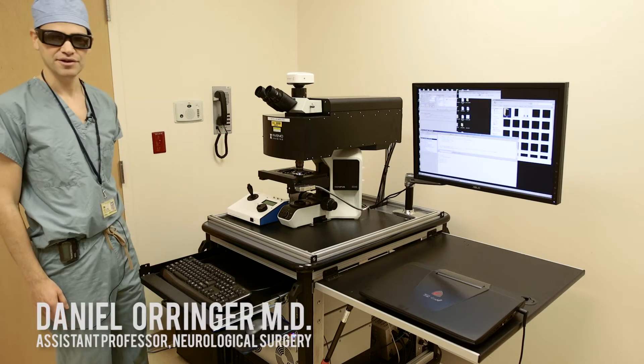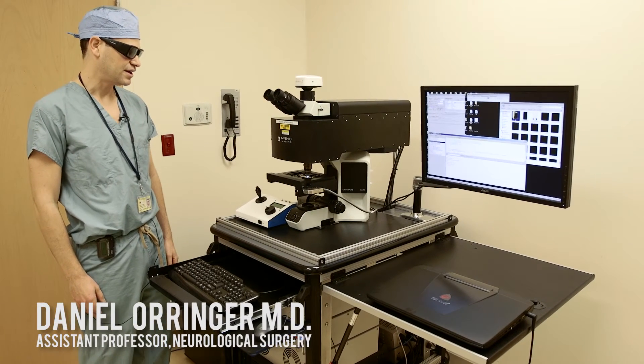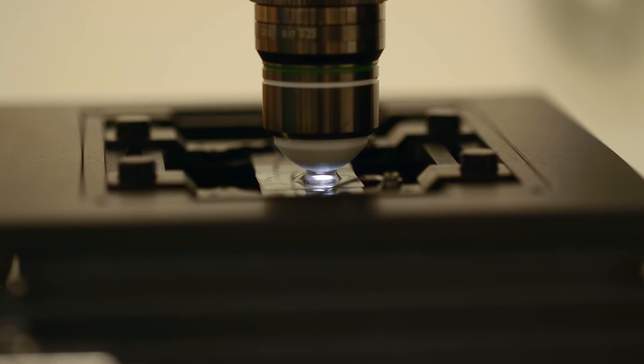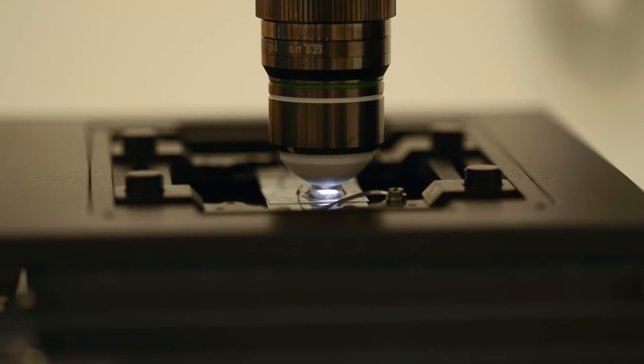This is the first clinical coherent Raman scattering microscope and the way this system works is that it's all based on fiber optic technology and fiber laser technology.